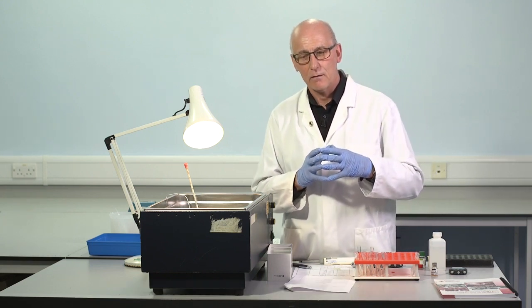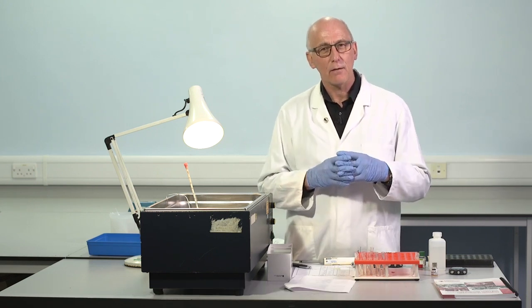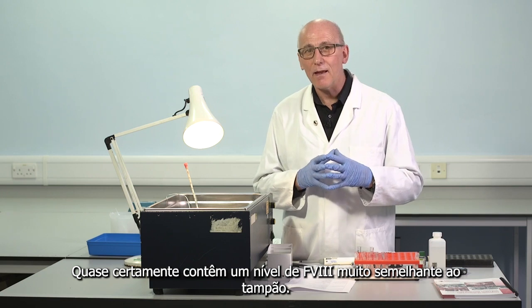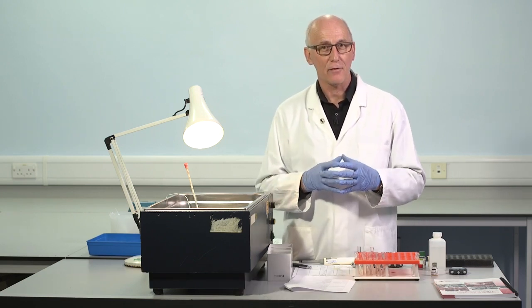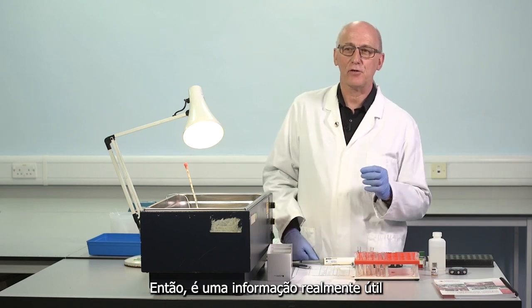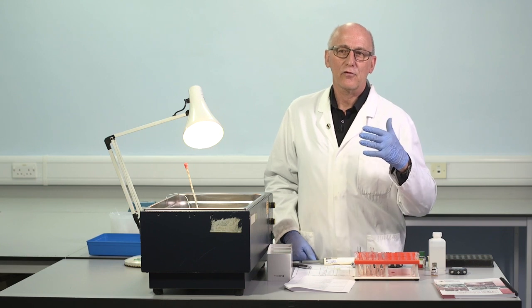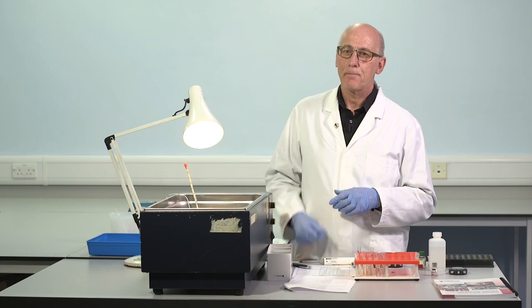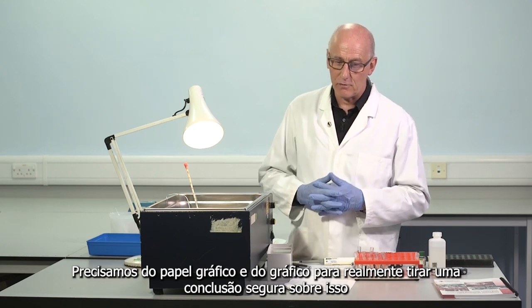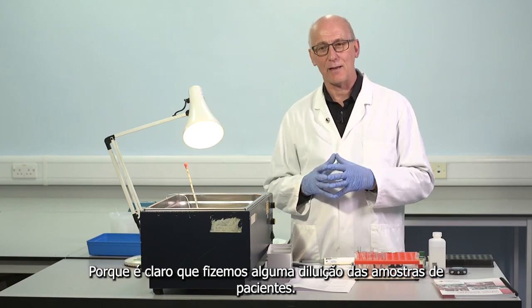Any patient mixtures with clotting times similar to this don't have sufficient factor VIII in to have any impact on the dose-response curve. And if the clotting times are similar, they almost certainly contain a very similar level of factor VIII to the buffer. In other words, no factor VIII. So it's a really useful piece of information that allows us to say any clotting times around this, such a patient sample is probably lacking any factor VIII. We need the graph paper and the plot to really draw a safe conclusion on that, because of course we made some dilution of patient samples.